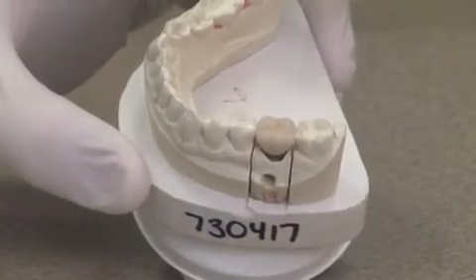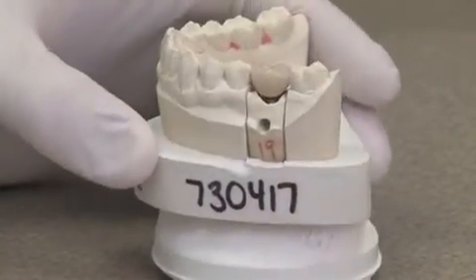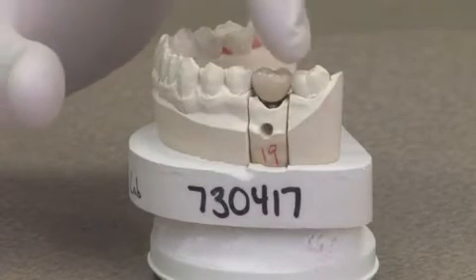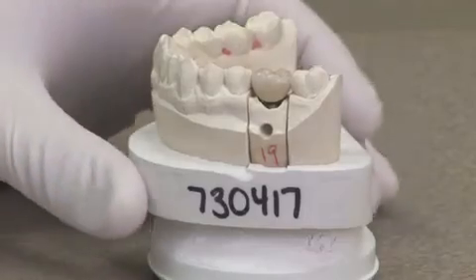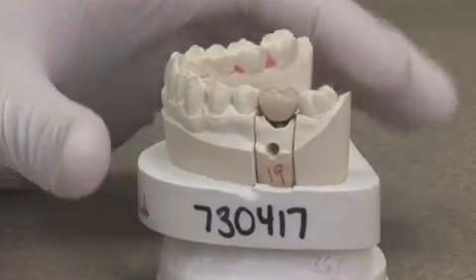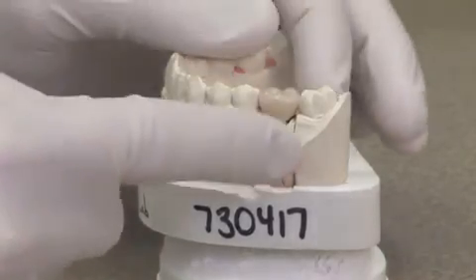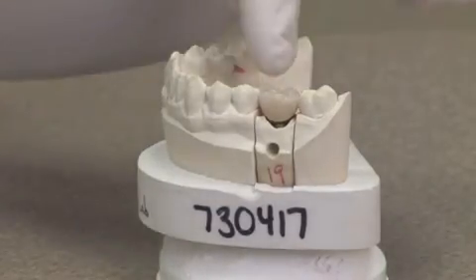Now the patient has got a restored dental arch, and it looks very natural — as close to natural as we can get these days. Also a nice benefit of an implant: the neighboring teeth were not touched. This is not like a bridge where all three are connected together. This stands alone, so you keep a single tooth problem a single tooth solution.